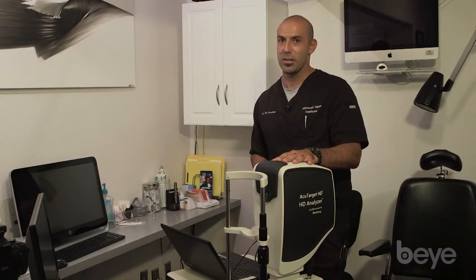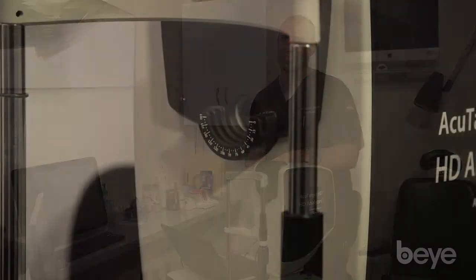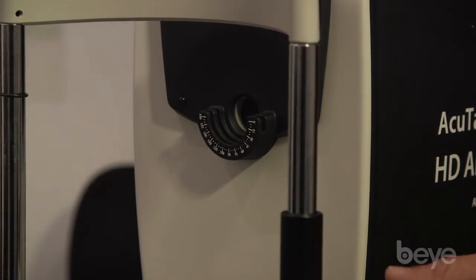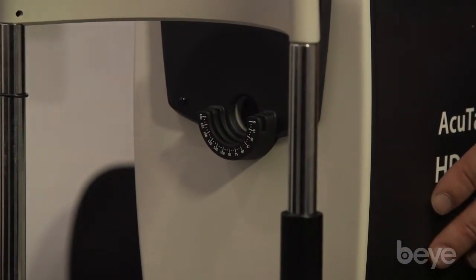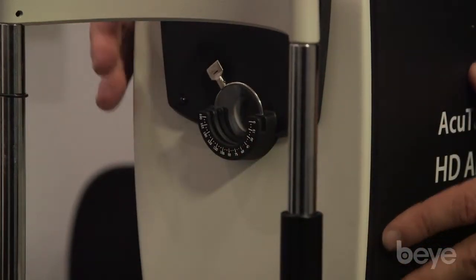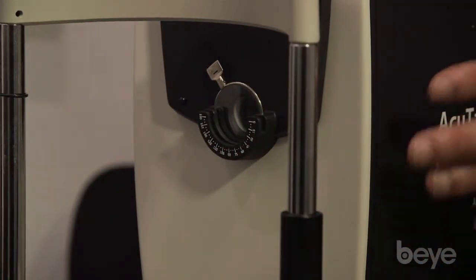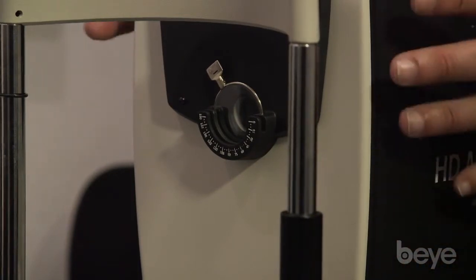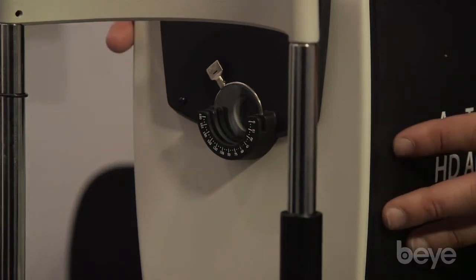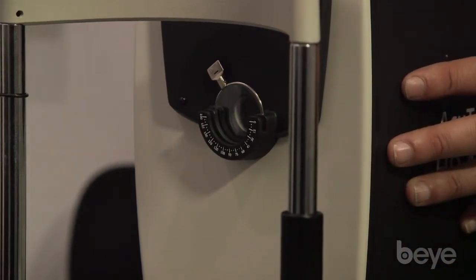But I think that's coming out in the next software generation. So another disadvantage to the instrumentation is the patients need to have their ametropia corrected if they do have a prescription in order for the test to be run correctly. If patients have a pair of glasses, they can wear their glasses during the test, or you can put trial lenses into the instrumentation in order to correct the patient's vision. Sometimes this can be cumbersome if the patients have a very high prescription above -6 or above +6 to use the trial lenses. So that's one disadvantage of the instrumentation.